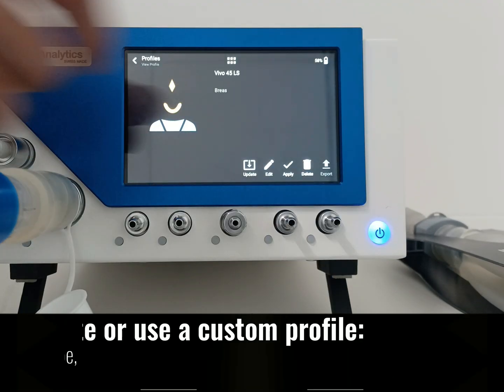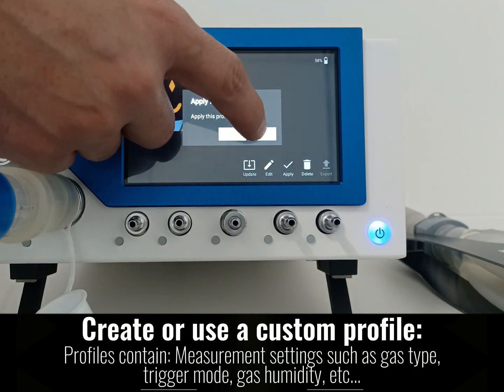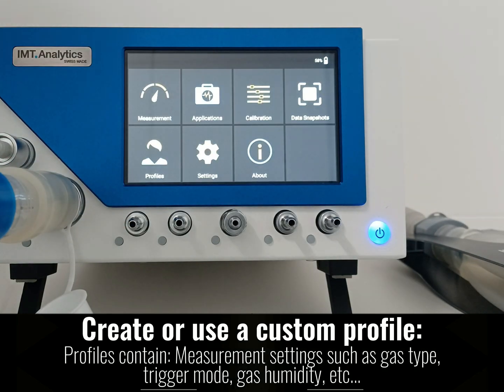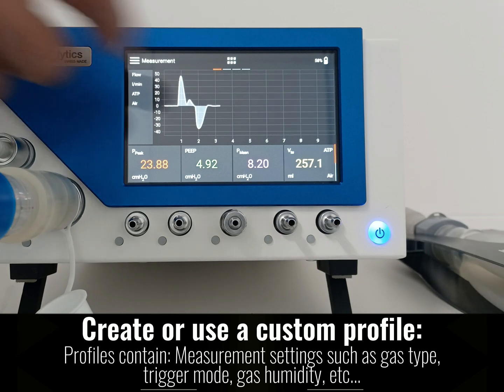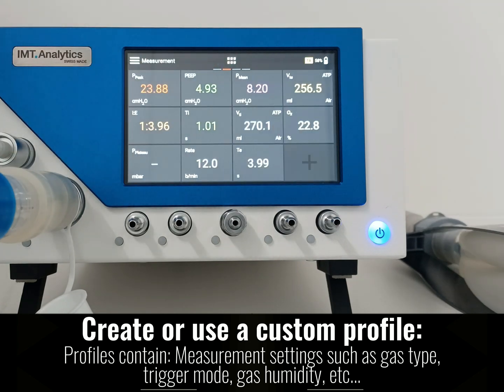Create or use a custom profile. Profiles contain measurement settings such as gas type and standard, base flow, trigger mode settings, gas humidity, etc.